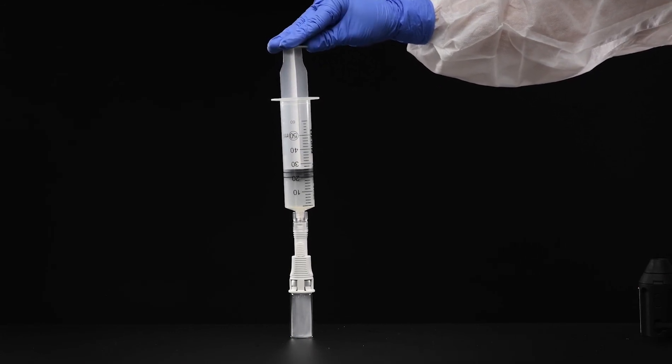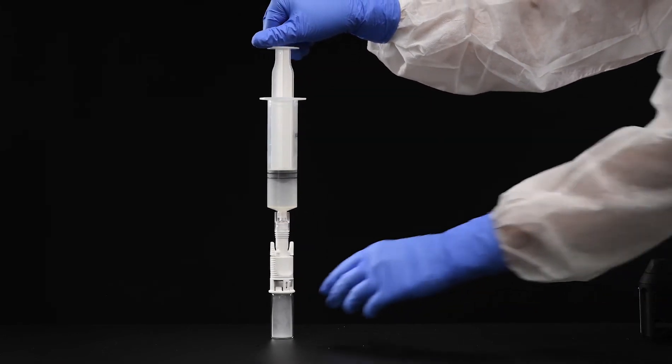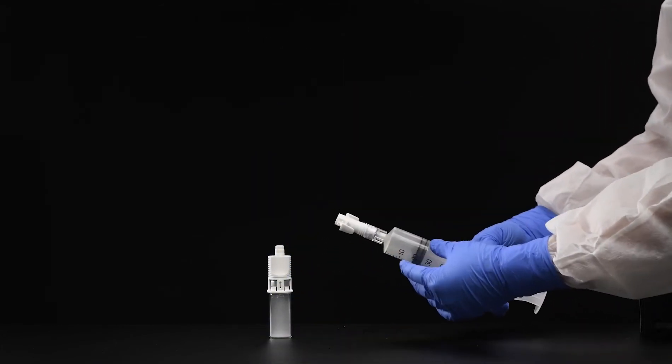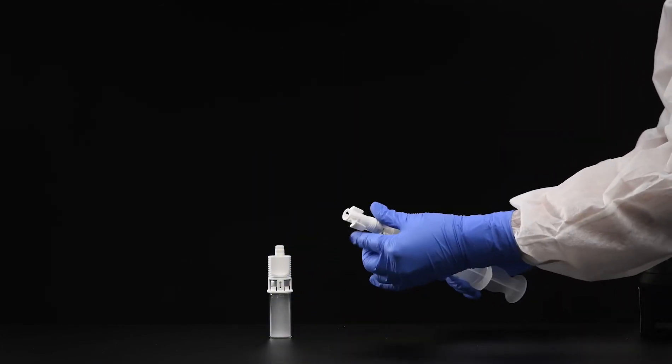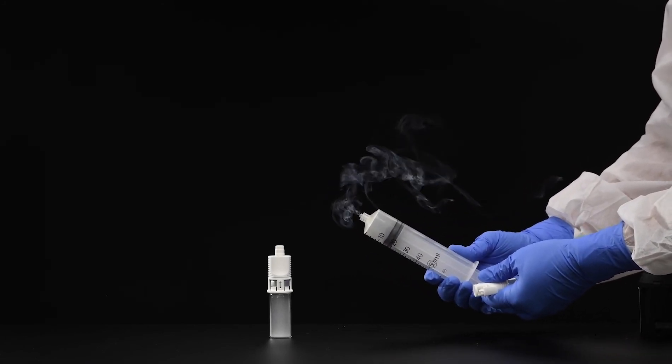CHEMFORT's Toxiguard air cleaning technology prevents the escape of vapors. Disconnect the syringe adapter. Removal of the syringe adapter allows the smoke to escape from the syringe.